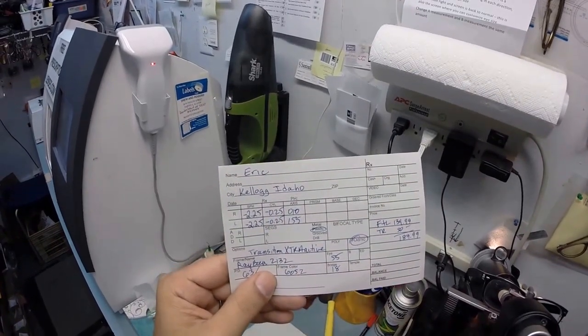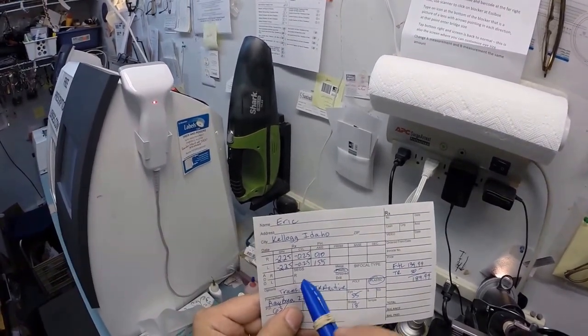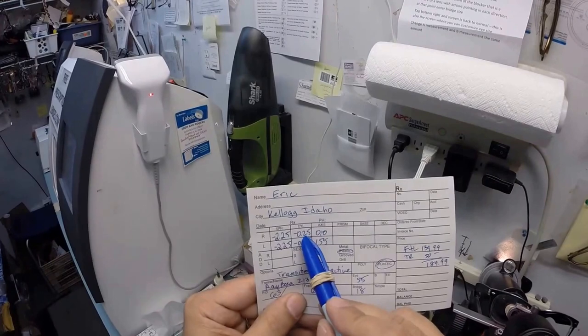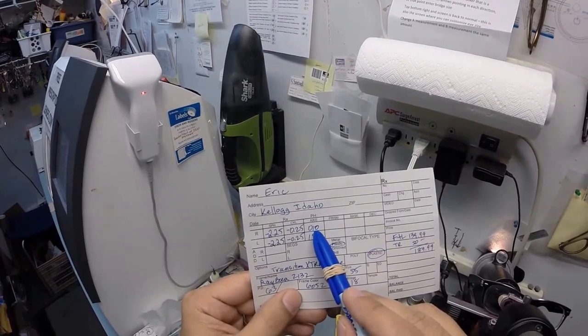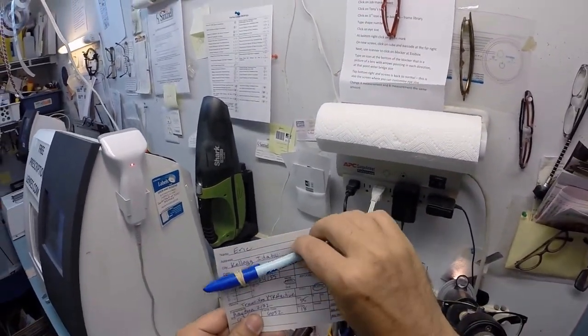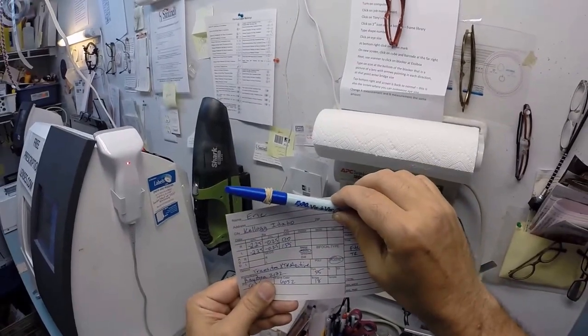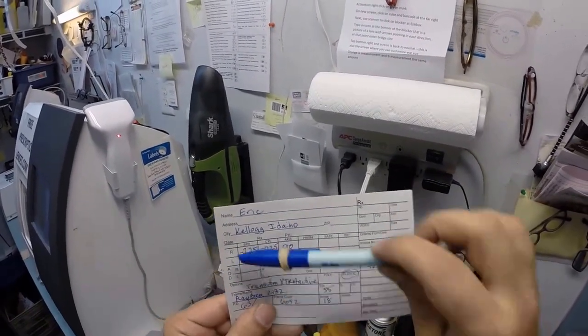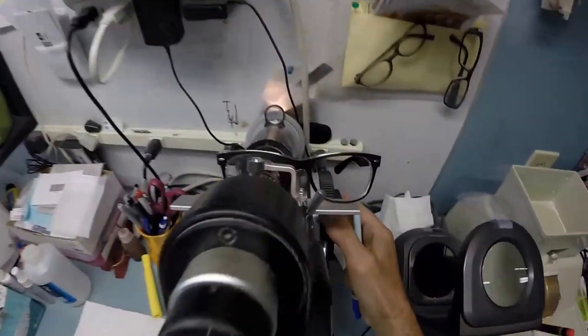Now once the object is the correct size, you need one step of astigmatism correction. There is a stigma over the word astigmatism. It just means shape. It's like saying someone has straight hair, someone has curly hair. Everyone freaks out over that word but that's just it - it's a shape. This number gets everything the correct size. Astigmatism is what makes sixes and eights look alike or the letters P and F. So it's the fine-tune knob. We're gonna turn that fine-tune knob to 10. A straight line is from 0 to 180 - 0, 90, 180, 270 for those keeping score at home. So we're just gonna turn that knob starting at 0 to about 10. Same powers for your left eye: nine steps of correction, one step of astigmatism correction. We're gonna turn that knob to 155, past 90 to about right there. We're starting off at 2.25. I'm gonna check the one step of astigmatism correction and we're at 2.50.